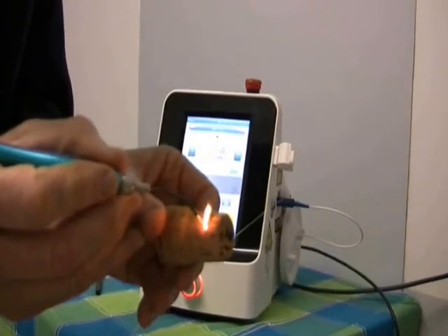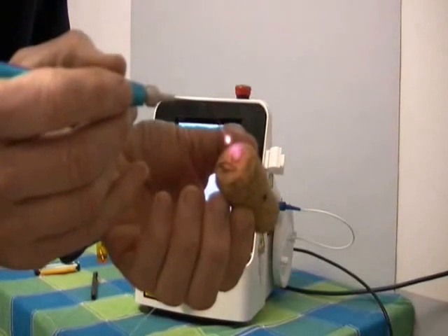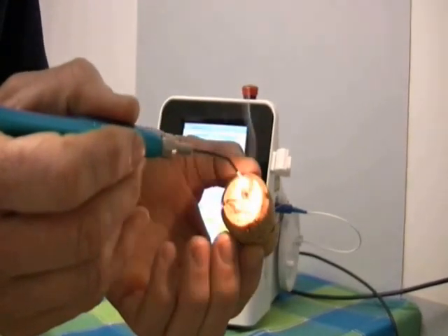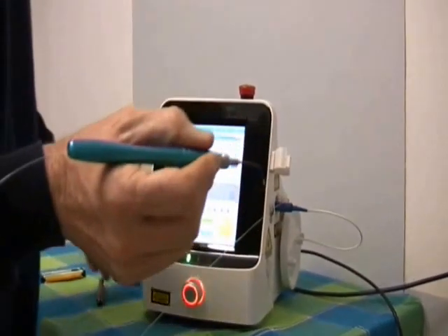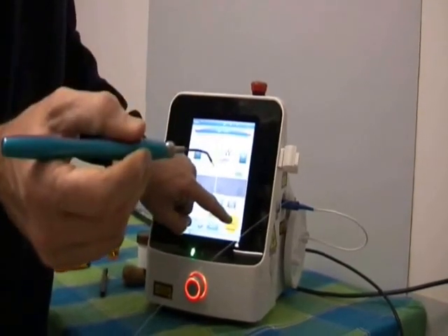In fact it's going to start burning the cork. And if I push this in — watch what it does — it just goes right the way in. And we're getting a layer of carbon in. And that's what you do when you're doing surgery. It doesn't burn, but that's what you do: you carbonize first and then you do your surgery.